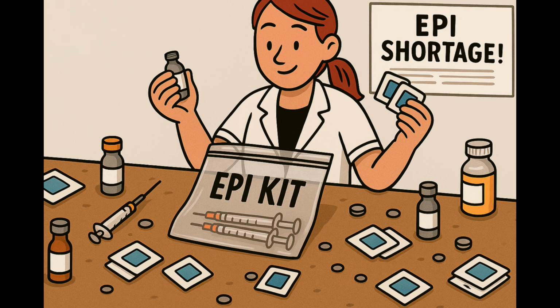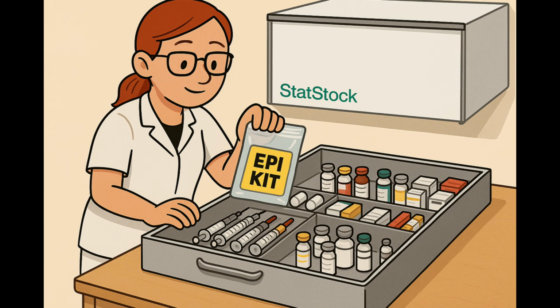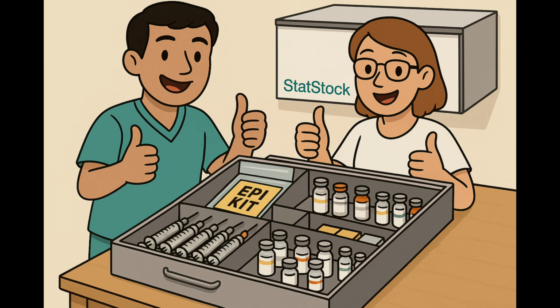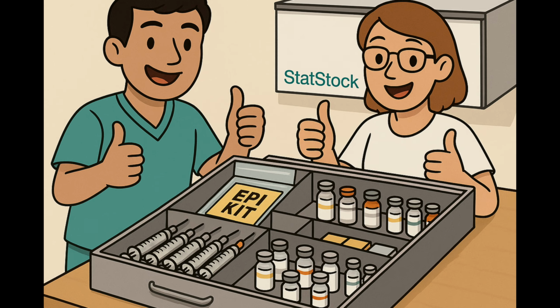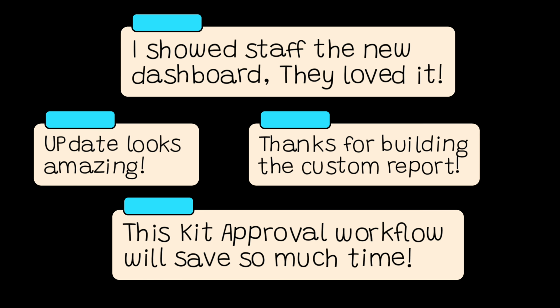Picture this. There's an epi shortage and you're building makeshift emergency kits. With StatStock, you can be confident each smaller kit is complete and verified before it's added to a larger tray. Smart idea, right? That's because our customers thought of it. We listen and build what makes their jobs easier.